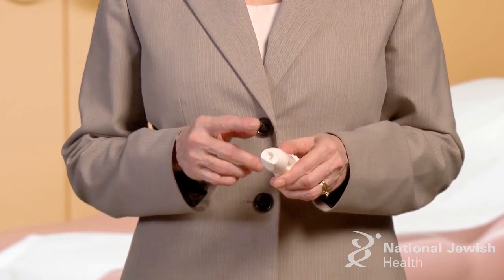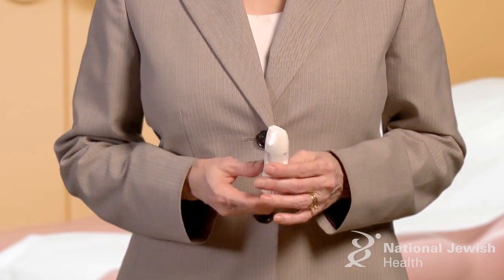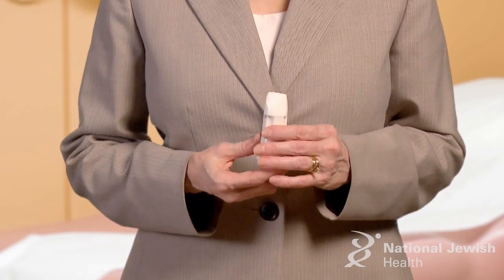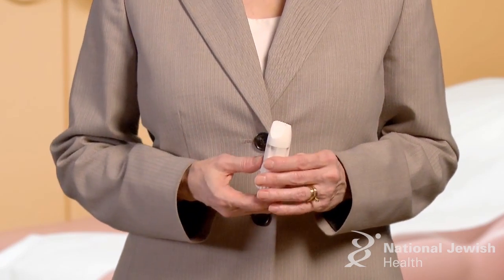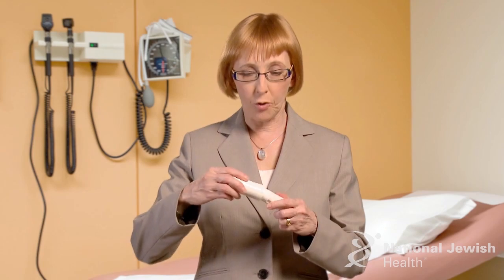To clean the Flexhaler, do not put it in water. Simply wipe the mouthpiece with a clean cloth when it appears dirty, or at least every week. Be sure to keep the cap on the Flexhaler after each use to help it stay clean.